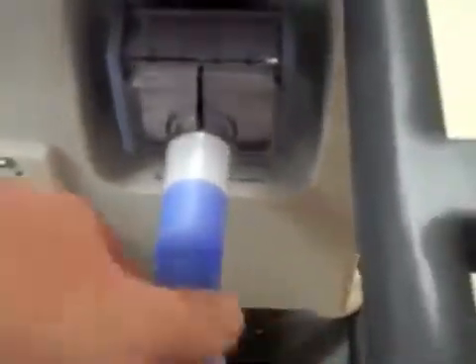We've got an inspiratory filter with an inspiratory line bringing gas to our heater pot, a blue line with heater wire all the way through it going down to my patient Y. It's got a temperature measurement at the chamber, a temperature probe also just before the patient Y. Exhalation is also heated going into my expiratory assembly. This is my expiratory valve with my water trap. Push that in and you're going to slide that bar down to lock that in.